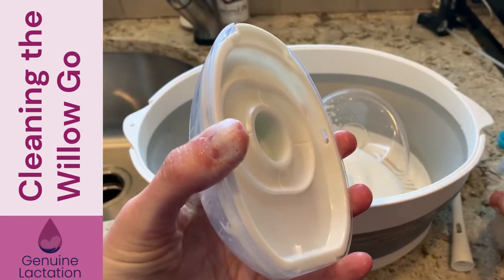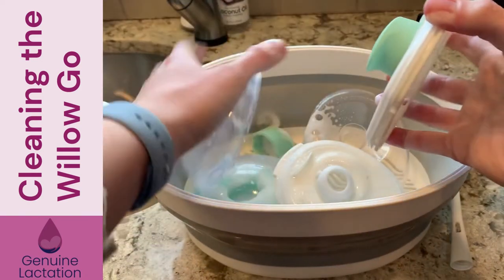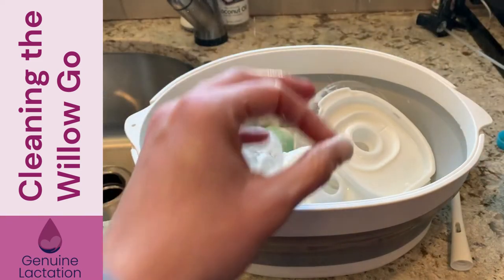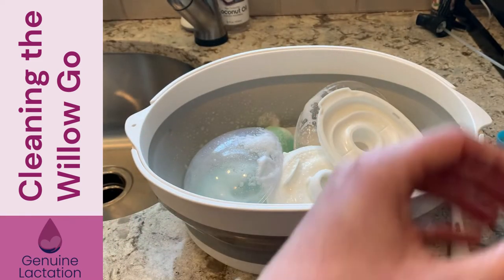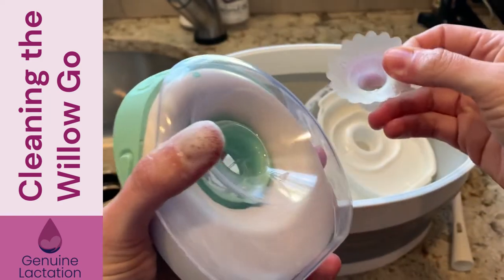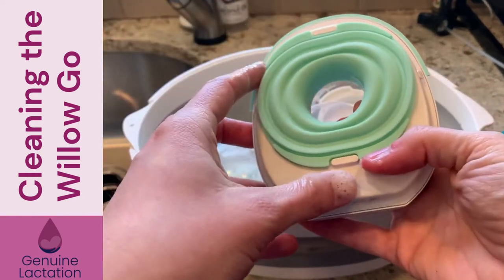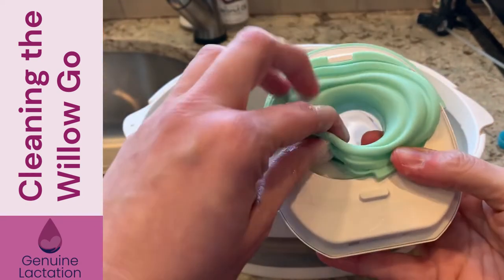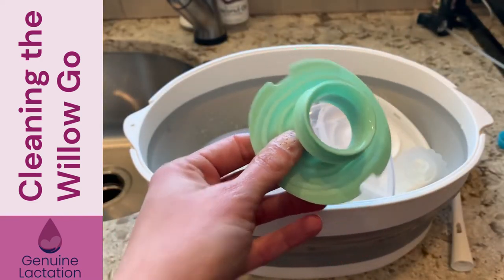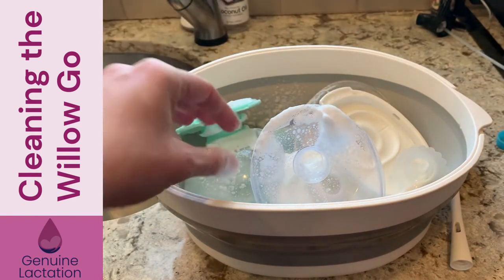This one, the milk container came off first. Pull this out, get your duck bill valve, and spray that down. Then disconnect your flange and your insert — you don't want to wash the flanges with inserts in place. I have seen people do that and it doesn't end well for stuff that grows on your pump. Again, pull the diaphragm out, put your hub to the side, and spray the diaphragm down.